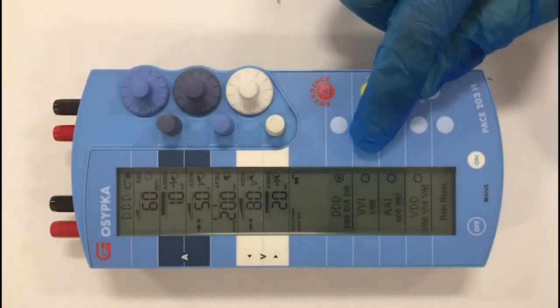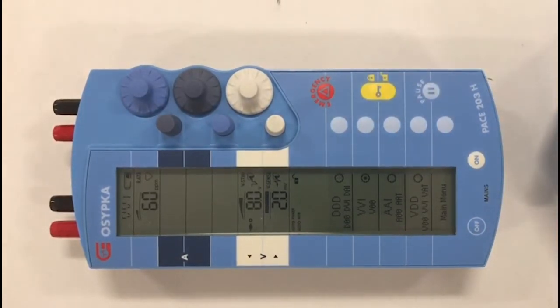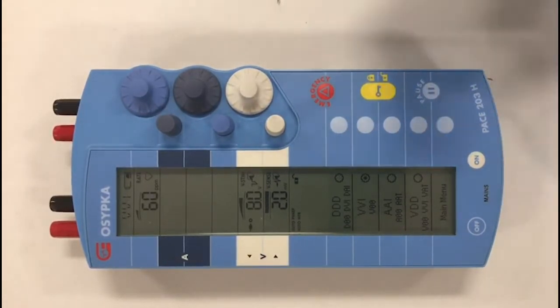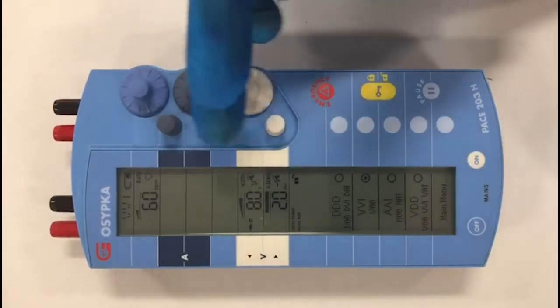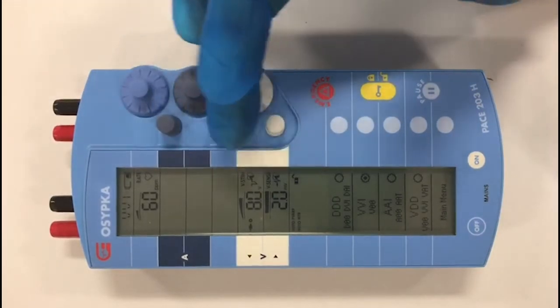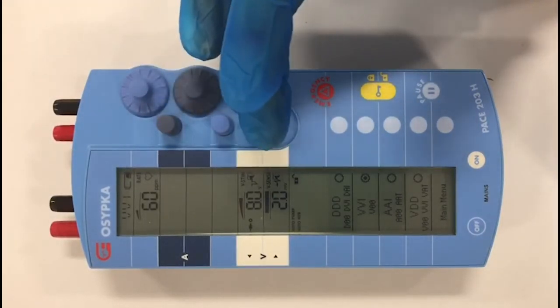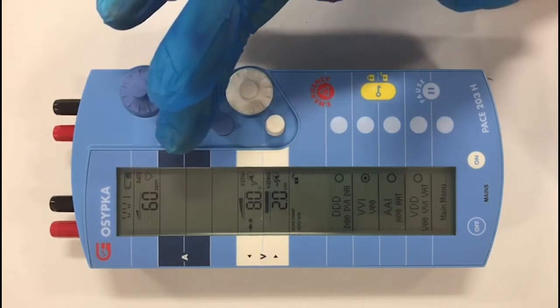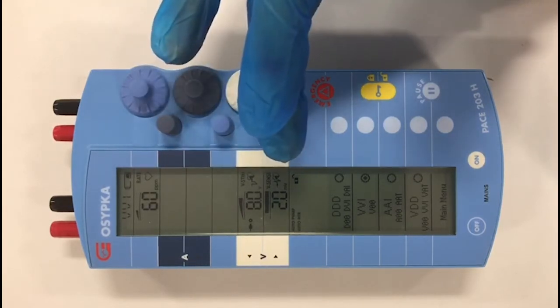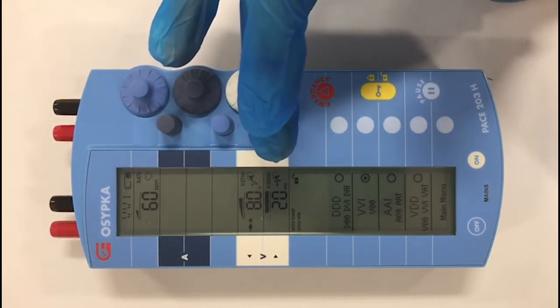I select VVI, which is a ventricular mode of pacing. What you notice in the top part of the panel is that all the numbers that are not relevant to ventricular pacing disappear, and I'm essentially left with three parameters.